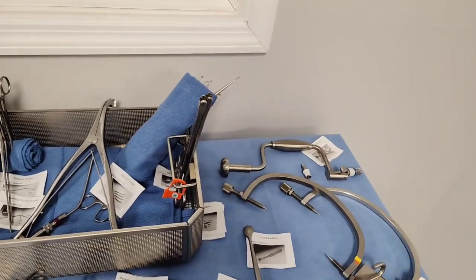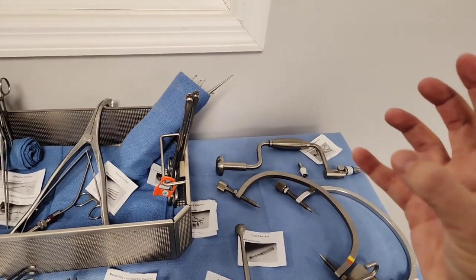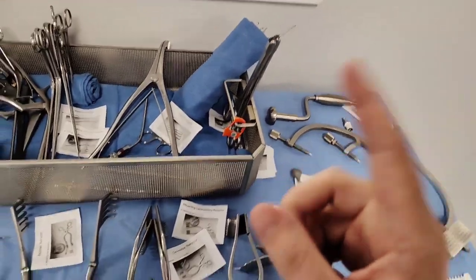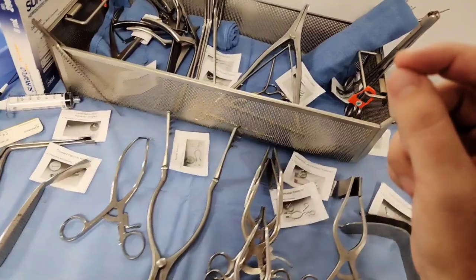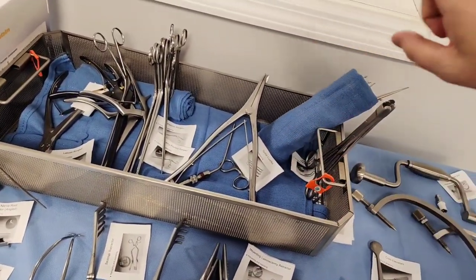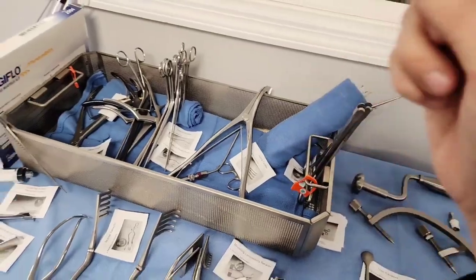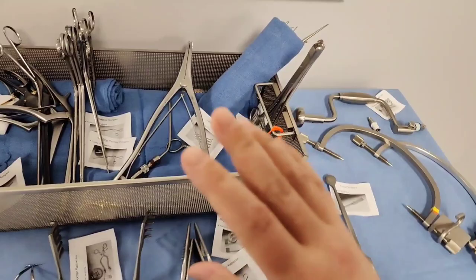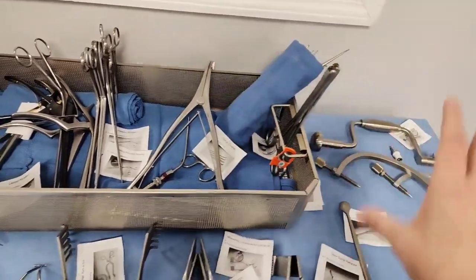We connect those burr holes with a pneumatic drill or perforator and take the flap off the brain. Just imagine we flip that part of the skin over — the skin on the actual cranium is highly vascular, it's going to bleed a lot. The Raney clips go around the perimeter of those skin flaps. They serve two purposes: they hold the skin flap in place and they control bleeding. When you think of Raney clips, think dual purpose — mainly a hemostatic purpose, controlling blood on the marginal regions.